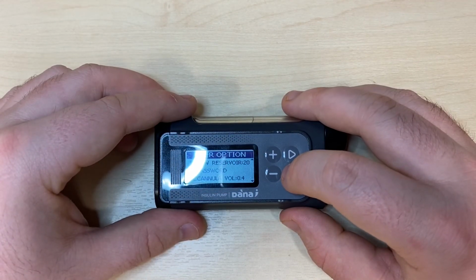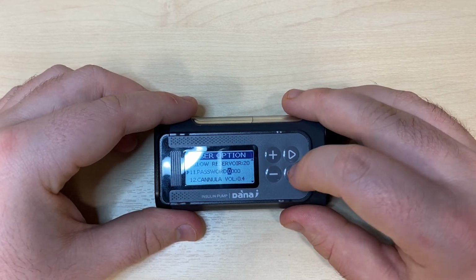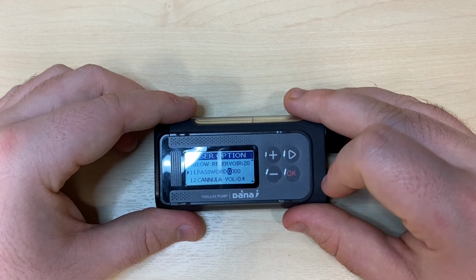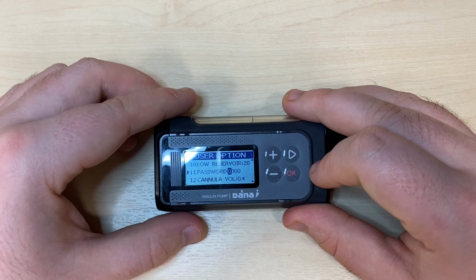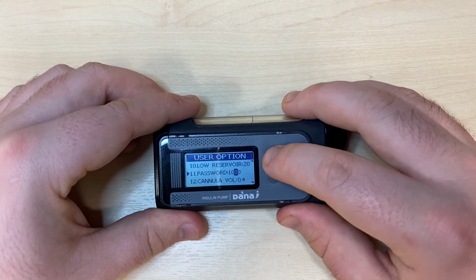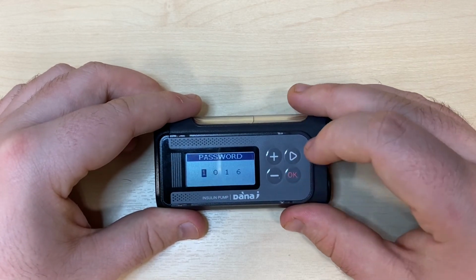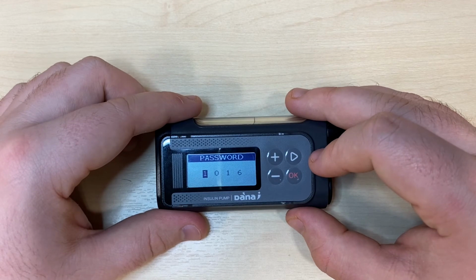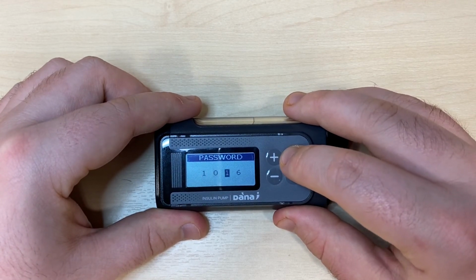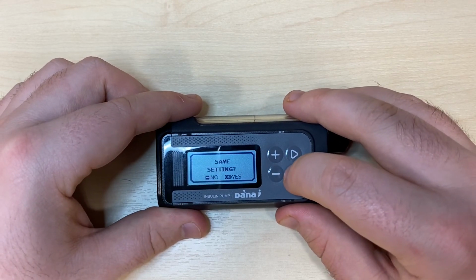This is the button lock password for the pump. In order to change it, you must first press OK before entering the current password using your plus and minus buttons as well as the right arrow to move across to the next digit. The default password is the month and then the day of manufacture. Pressing OK will let you into this screen where you can change the password to be anything you'd like. Press OK and OK again to save.